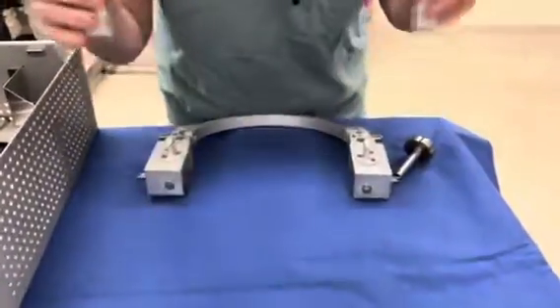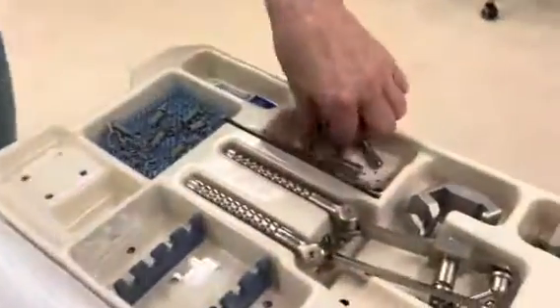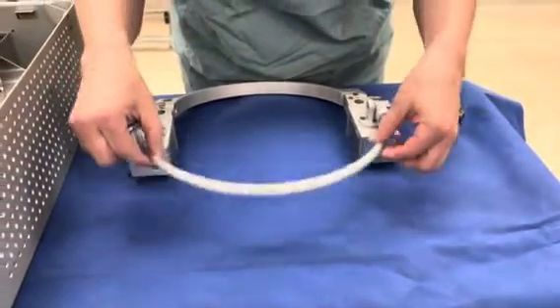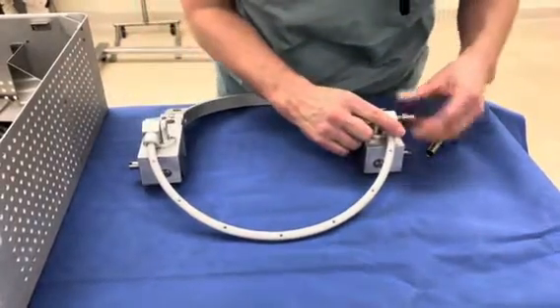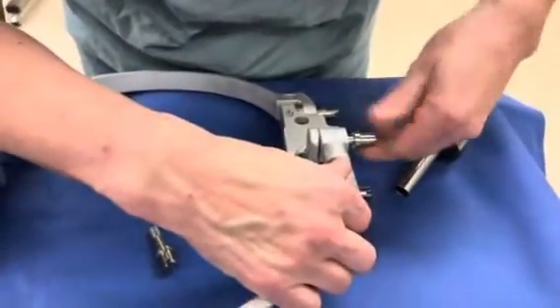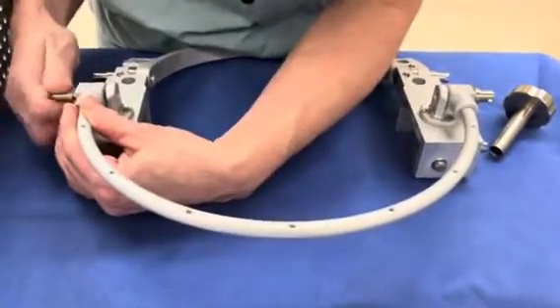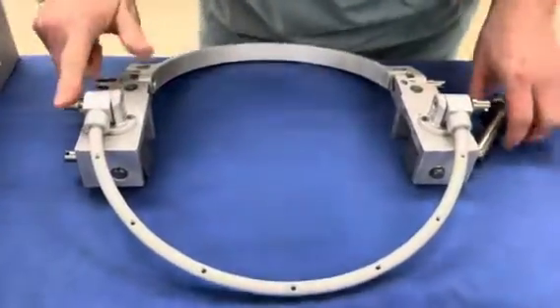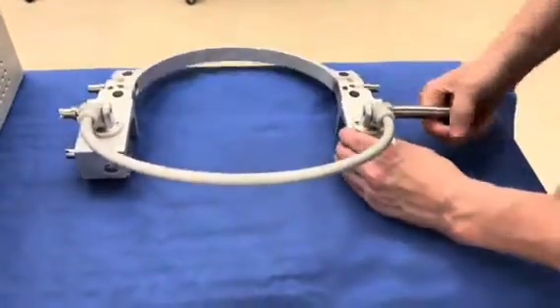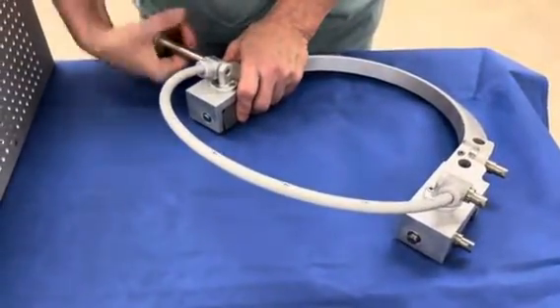The surgeon might want to use this piece here. To fix this, we go back to the same kind of pins. Your little semicircular frame here fits on the outside. Go ahead and hand tighten, and just make sure you're not stripping the screw when you're putting it in. Now go from that side — it's a little bit harder to do but it still works. Just do it until everything is nice and secure.